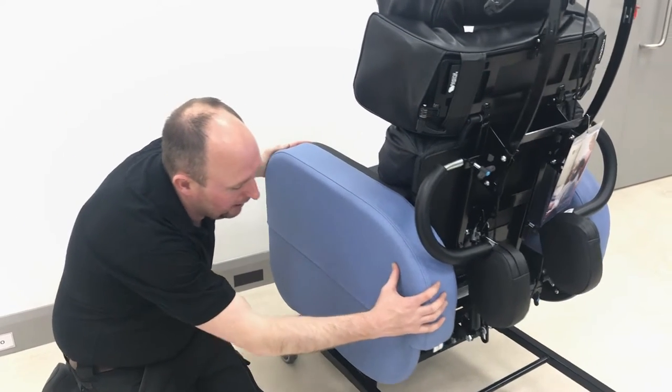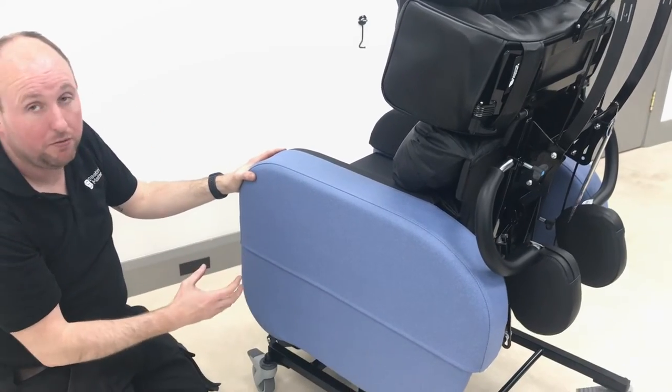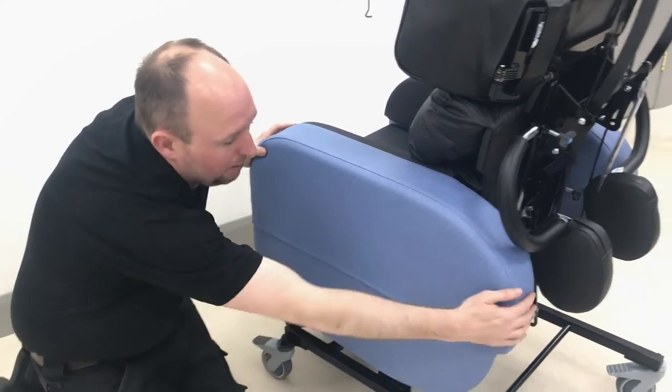Hi, so we're just going to show you how to get to the cable for the leg rest. I'll explain how to take the arm off.